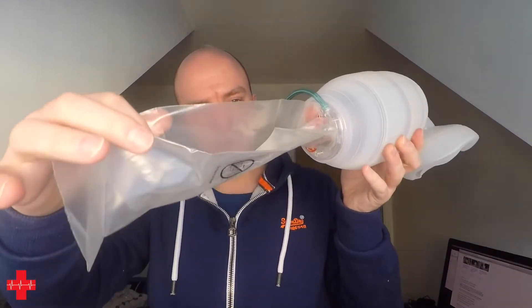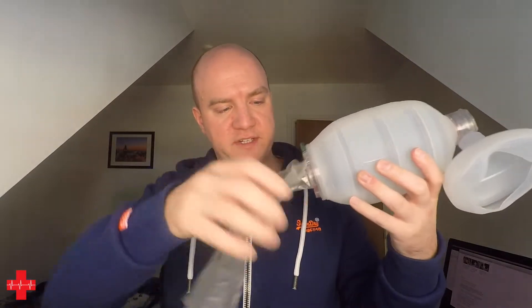There is your tail for connecting oxygen if you have that available. The reservoir will inflate as usual — you can just unfold it and you are good to go. This is a single use item, so if you're using this on a regular basis, spending about £40 to £55 that it costs here in the UK is not the cheapest way to go, but it's definitely something that's nice as a backup.